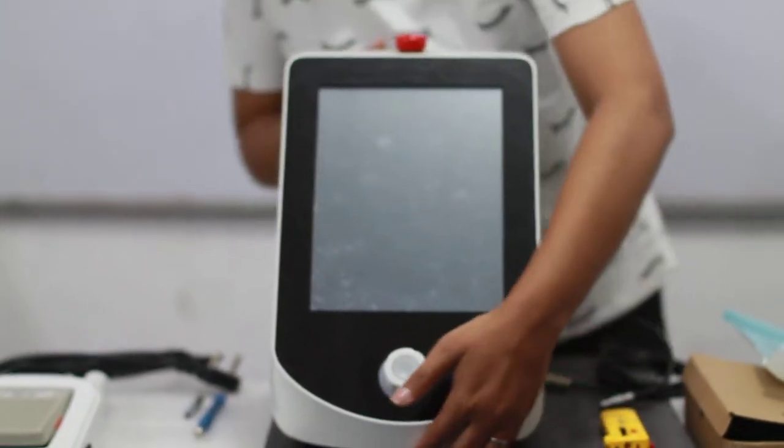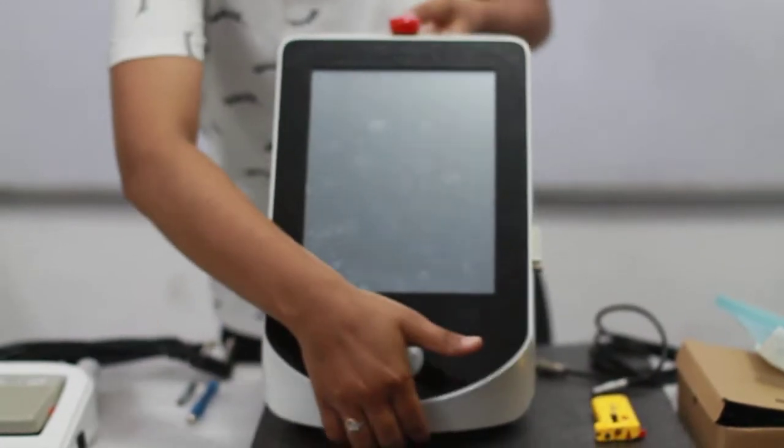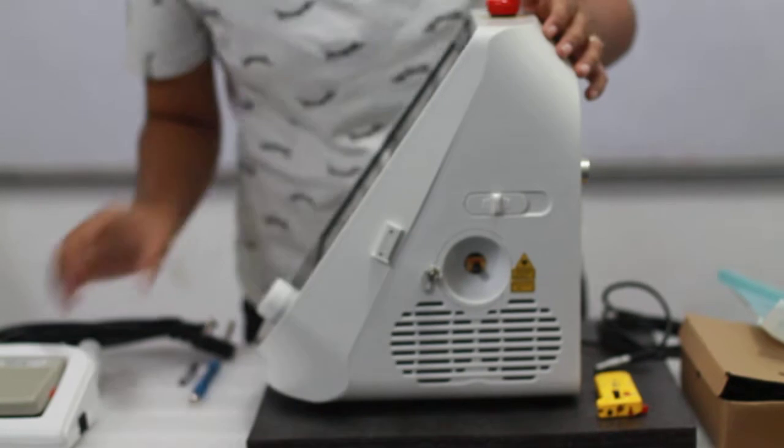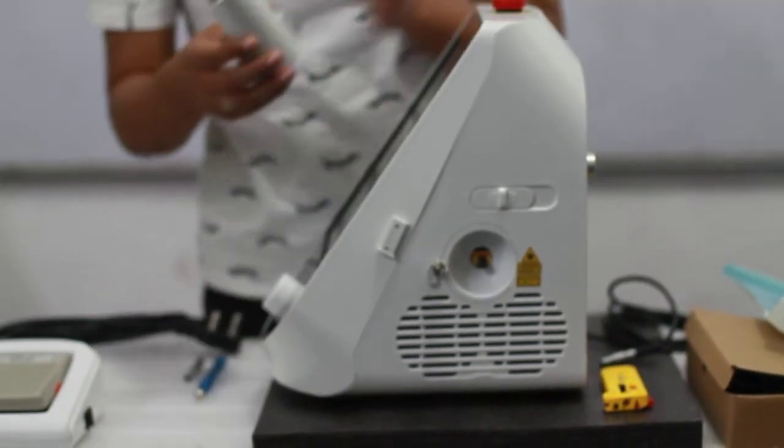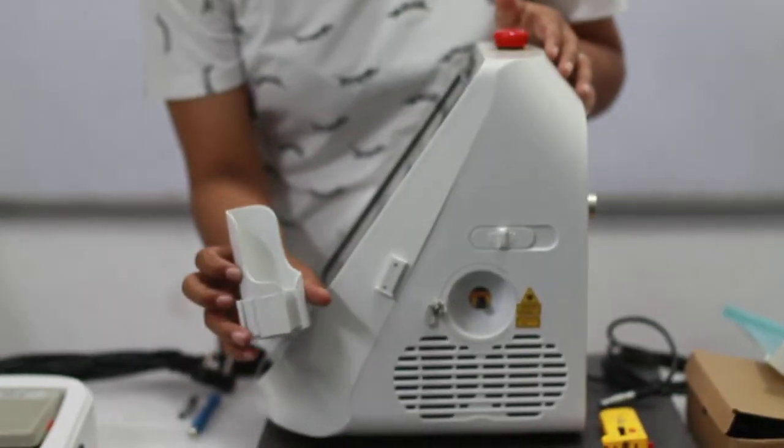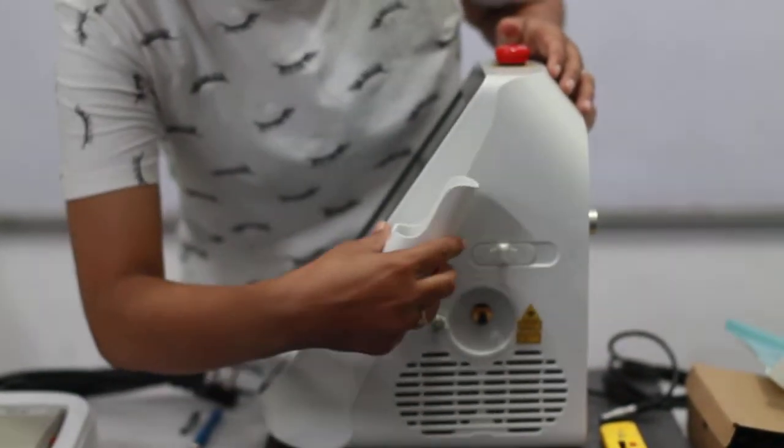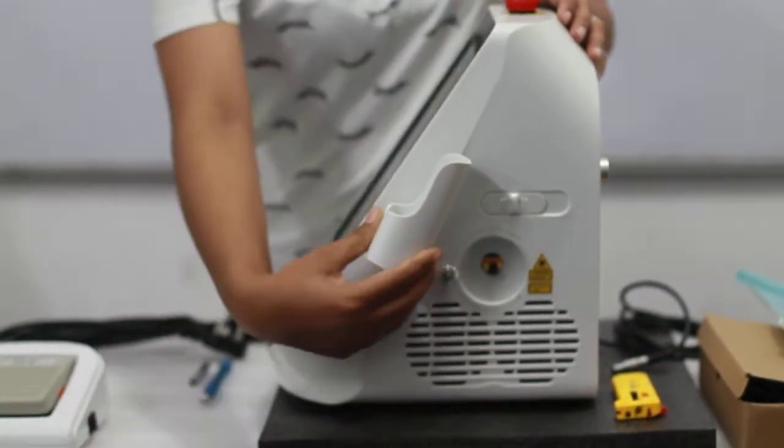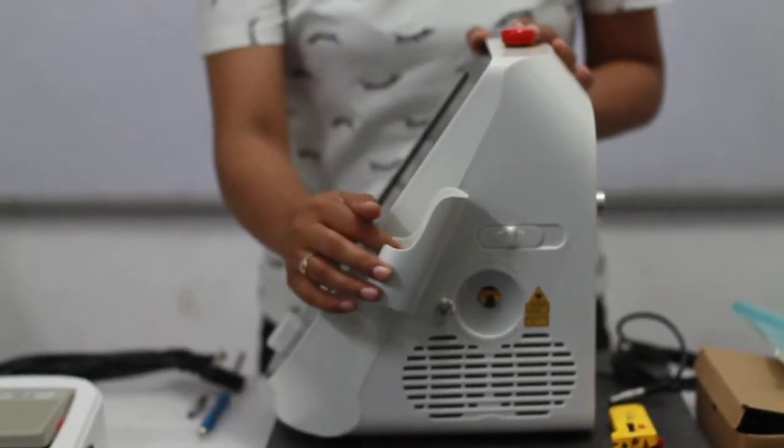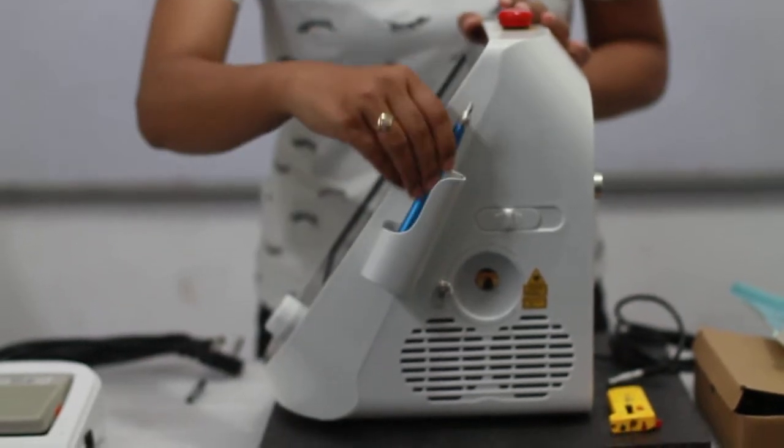So we will put it on this side. You can see a place. This was the stand which was previously shown. This goes like this and slides on. This is an attachment which is being given to hold your handpieces.